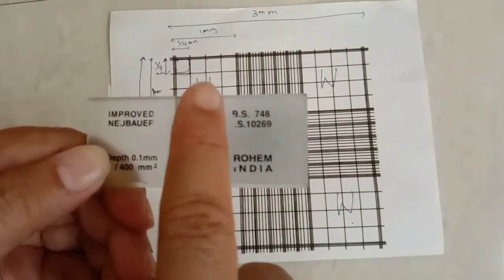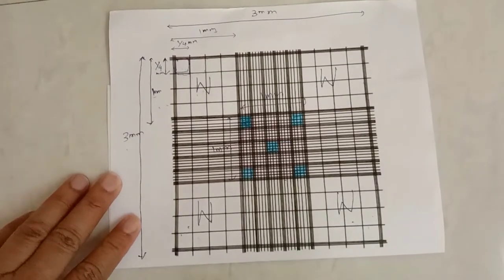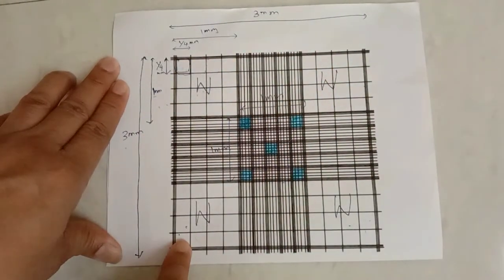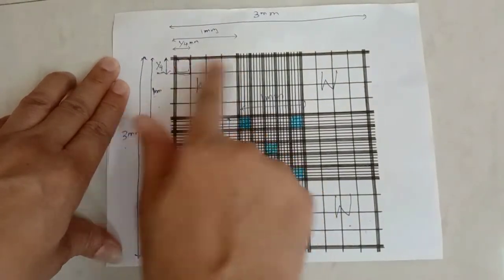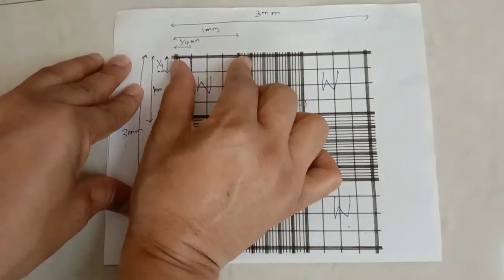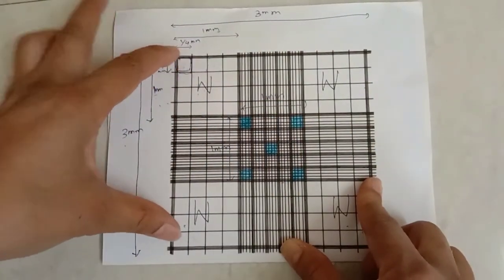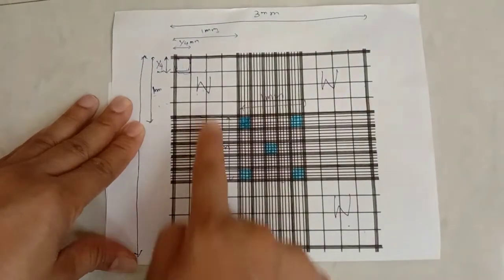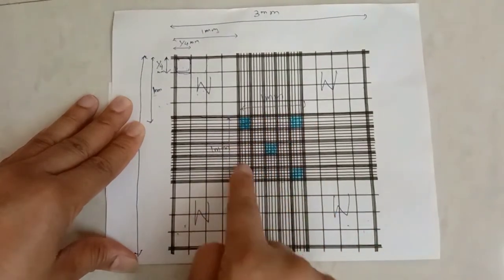The improved Neubauer chamber slide has a central platform with counting grids. When visualized under the low power objective of the compound microscope, the counting grid has nine large squares — each with a dimension of 1 mm length and 1 mm width. The overall grid is 3 mm × 3 mm. The corner large squares are used for WBC counting and the central densely ruled squares are used for RBC and platelet counting.